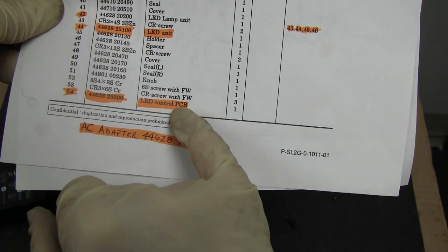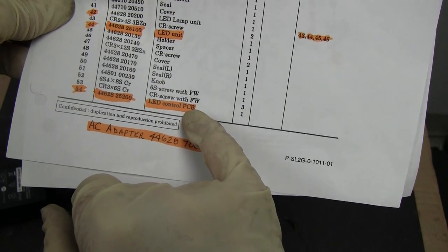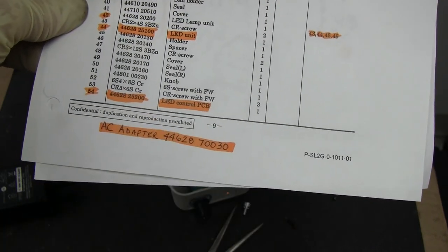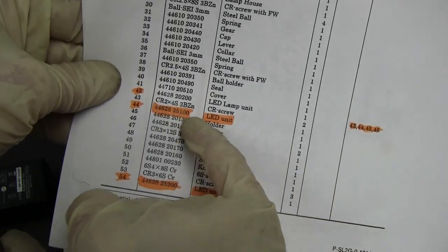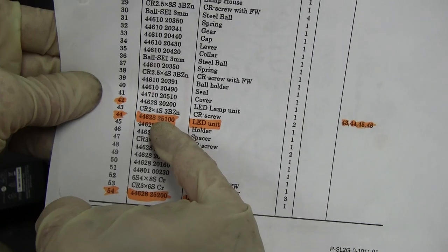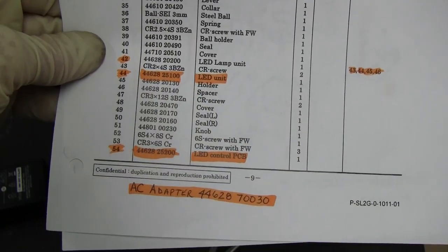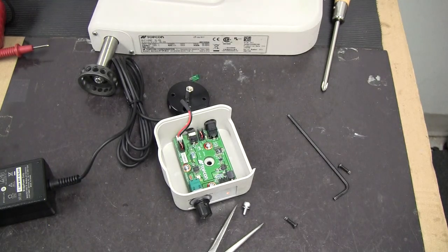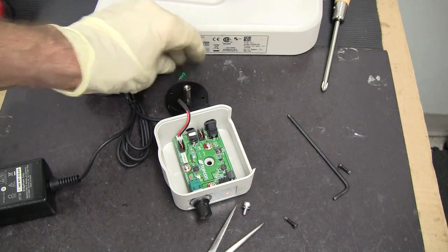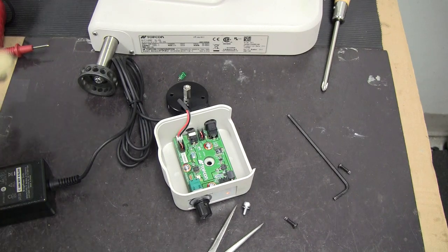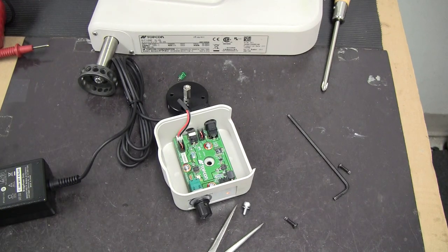If your control PCB board is bad, that's the number. And if your LED is bad, that's the number. I hope this can help you out to diagnose your 2G not coming on.